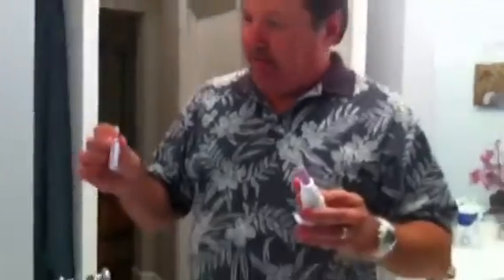This is a demonstration of using a nasal spray and making it into a nasal solution for instillation in your nose. I'll just go ahead and start.